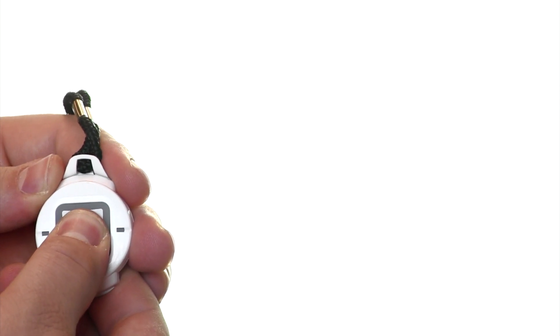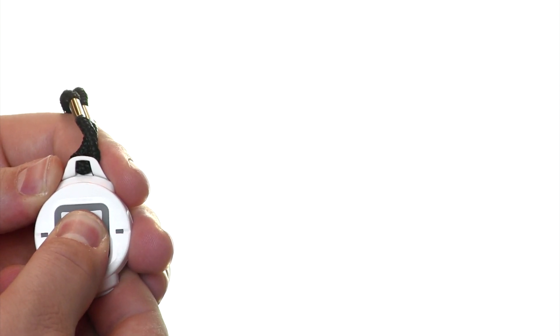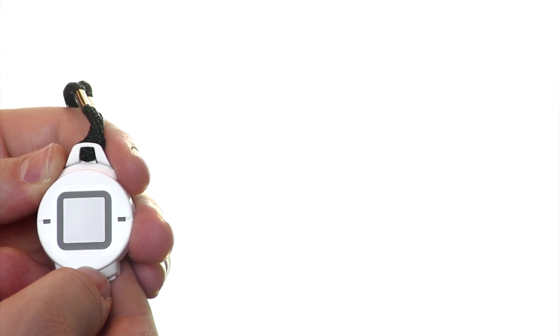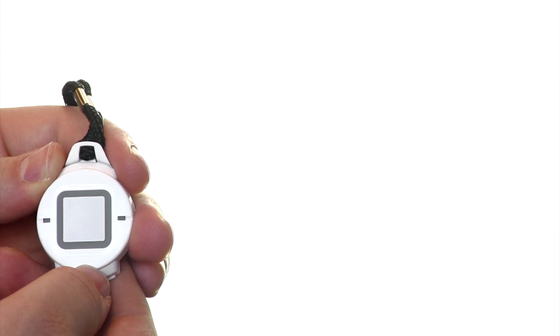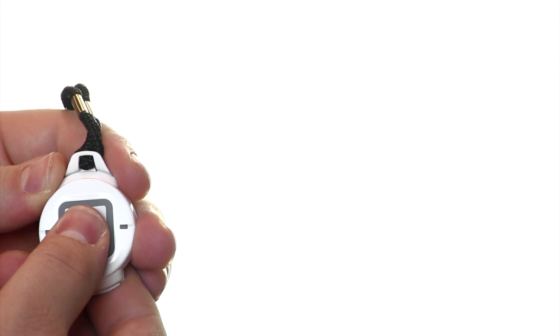You want to press until you see the red lights. A quick press will not work on the device, but if you hold for about three seconds, it will.